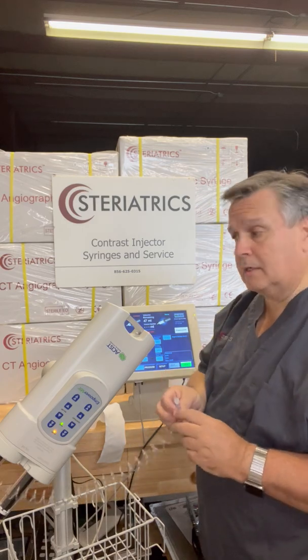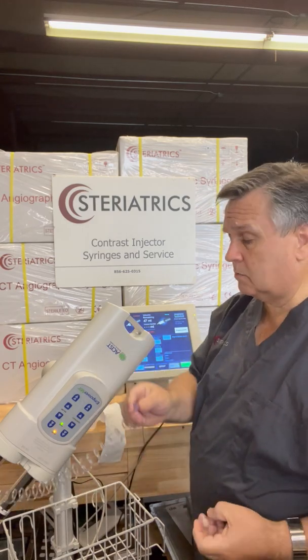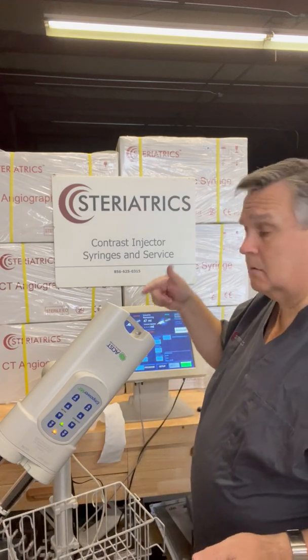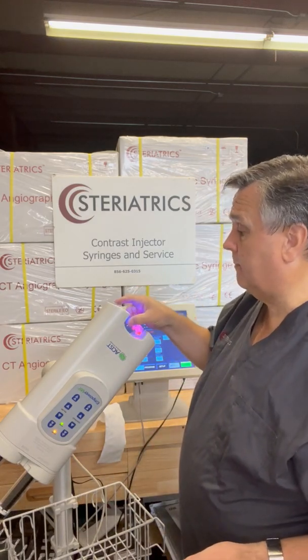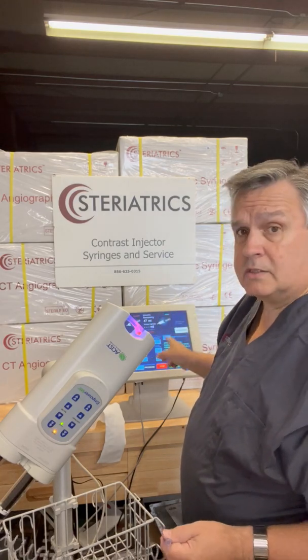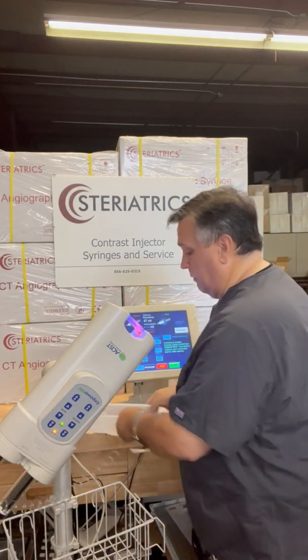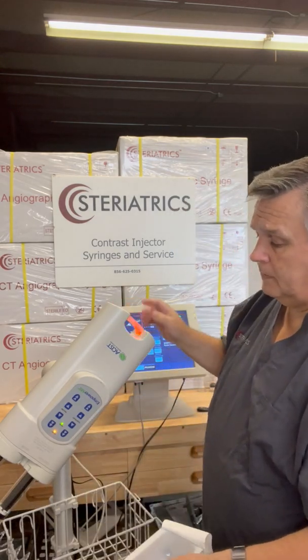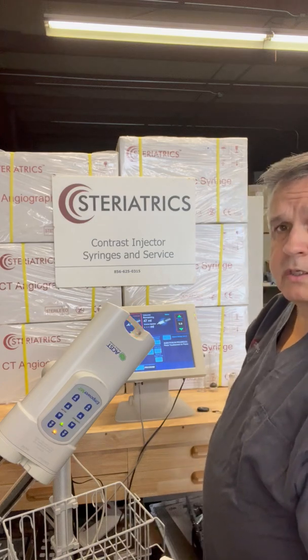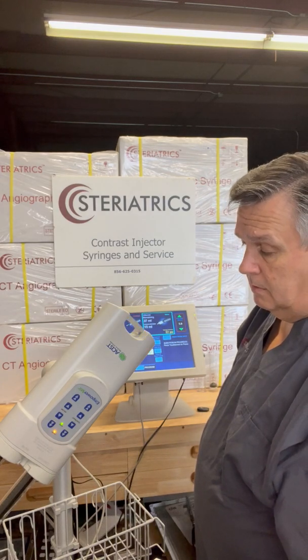Let's say we want to connect to the patient — we've got everything set up and the patient is stuck. We just want to do the connection. Press arm. System is armed. Then we just press the run button. Of course I'm going to run it here and all that's going to go squirting into the tray.